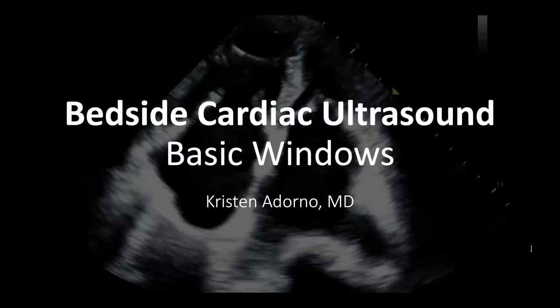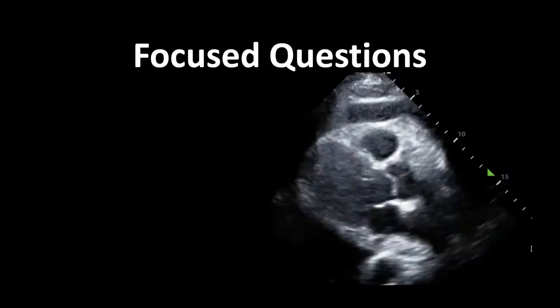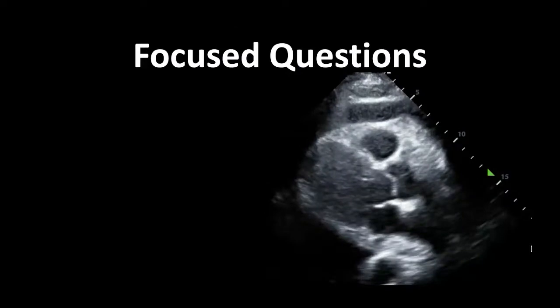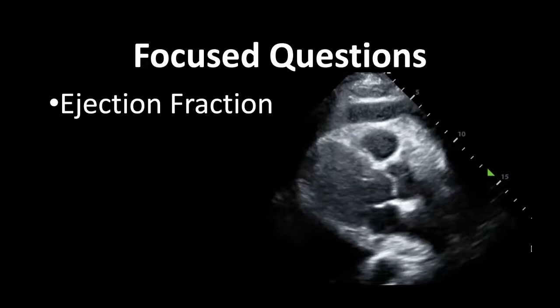This is the beginning of a small series on cardiac ultrasound. This first lecture is going to be focusing on just what views you're obtaining and how to get them. It's always important to keep in mind when you're doing a point-of-care ultrasound: what specific questions are you asking?